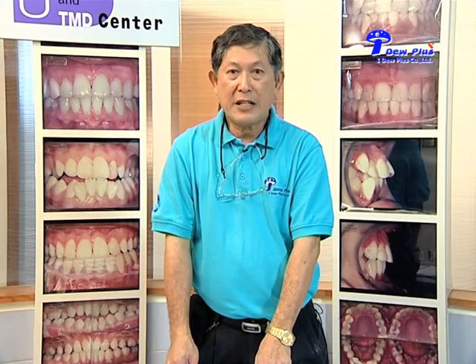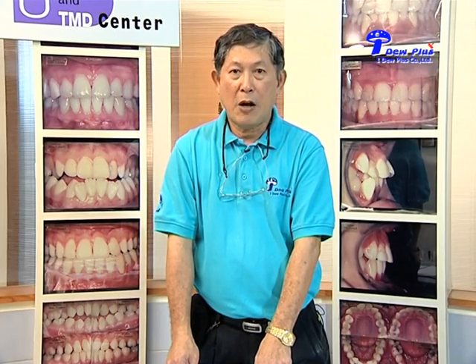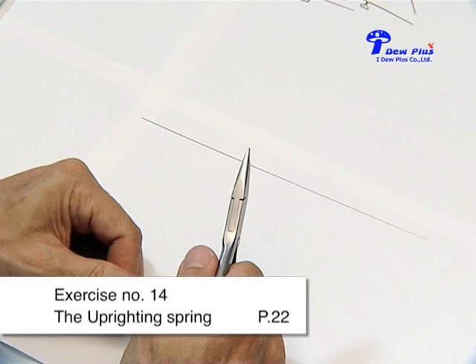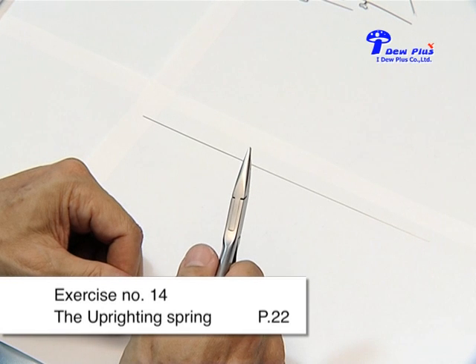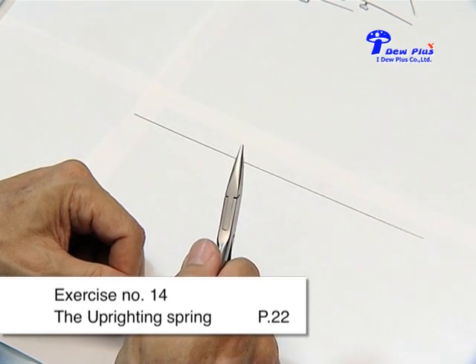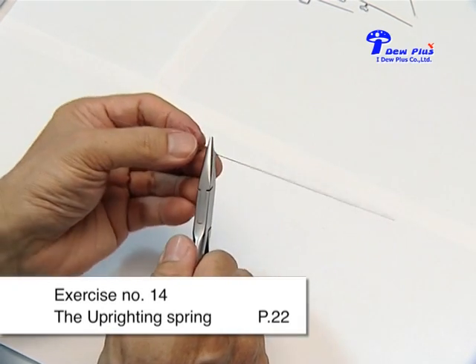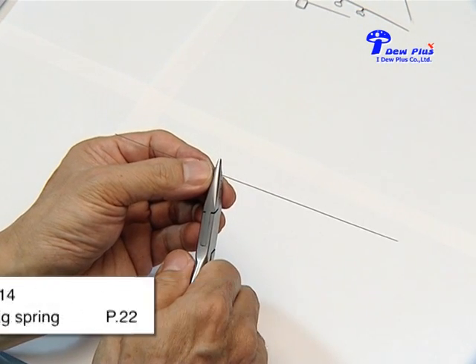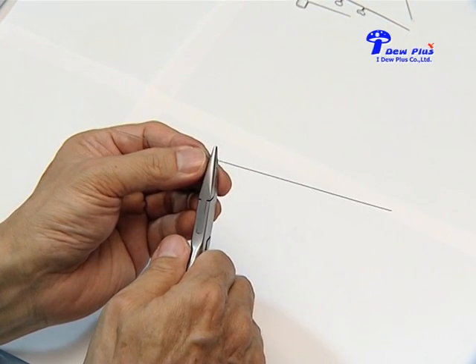The next exercise, we will do the auxiliary spring. Exercise number 14, the uprighting spring. Next, the auxiliary spring — exercise number 14, the uprighting spring.